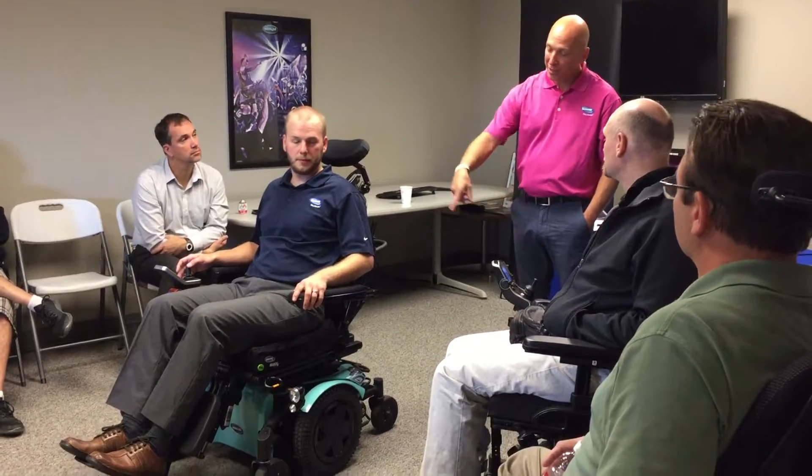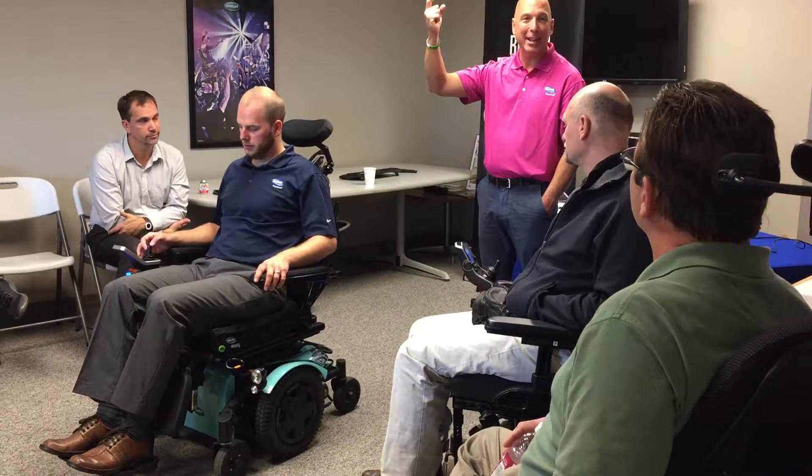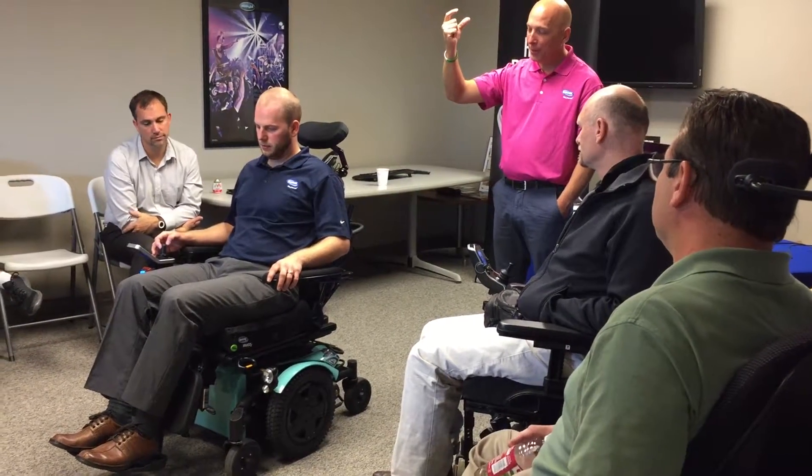You're living with that huge gap all the time and you're never needing it. But if you look at that chair there, that's a six-inch gap. And with the cushion on there, there's hardly a gap there at all.